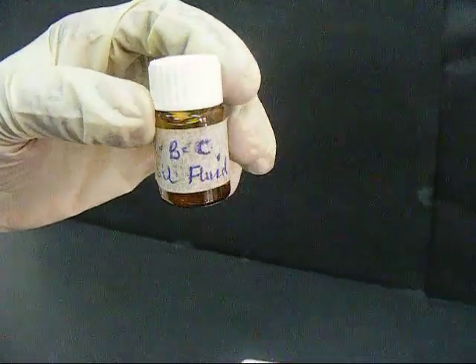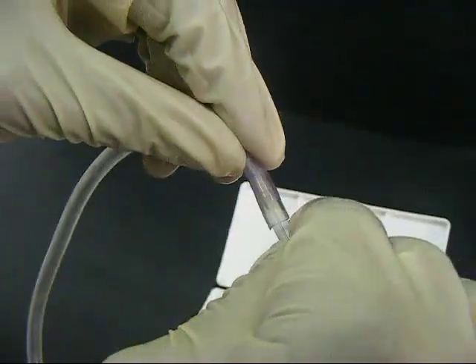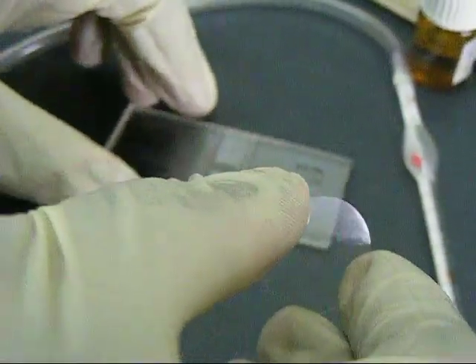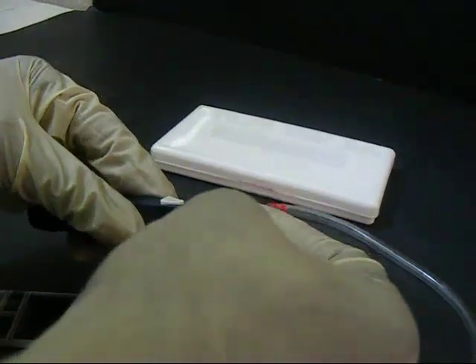A red blood cell diluting fluid is also required. A plastic tube for pipetting is attached to the red cell pipette and made ready for use. The counting area and the cover slip are both wiped with a clean alcohol swab. The cover slip is then placed firmly on the counting chamber.